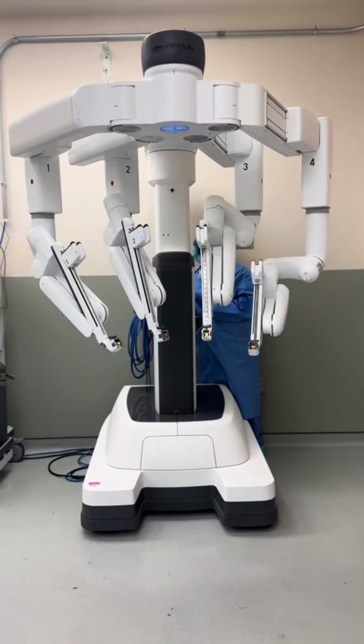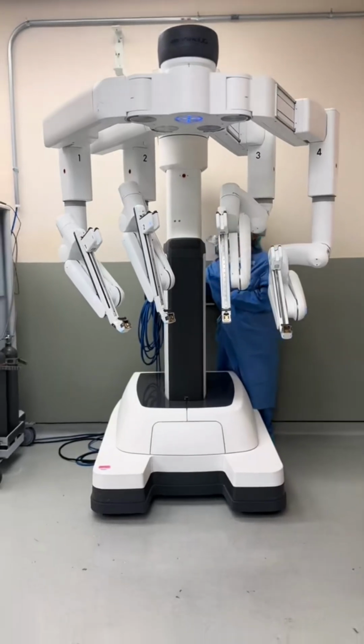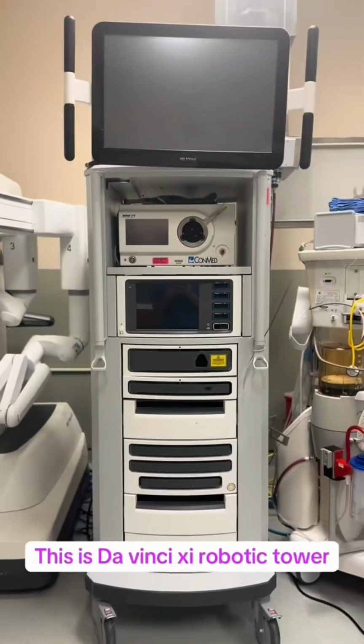Hello everyone, this is Susma explaining in brief about the robot used in robotic surgery from the circulator nurse perspective. So this is the robot and this is the robotic tower.